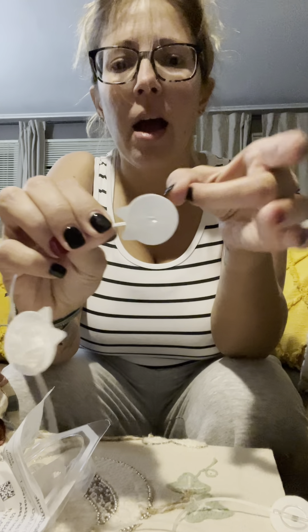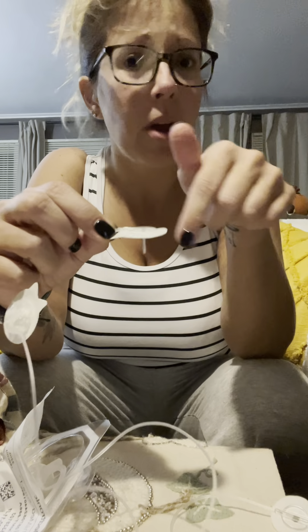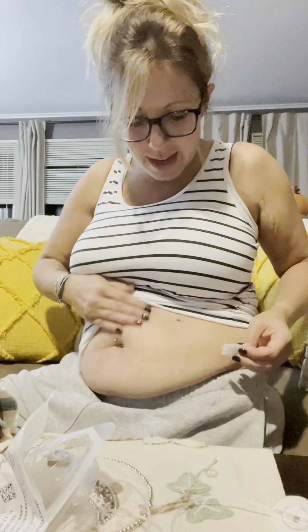There we go. There's the sweet nectar. All right, so now we have it in here — I flick it to get all the extra crap off of it. Now with the metal ones, you do not have to fill the cannula once you put it in. These are super easy. First, we're going to pick a spot — I use my belly for these.